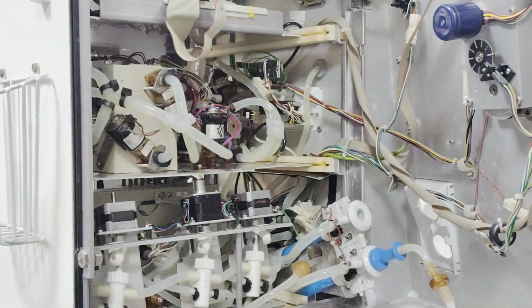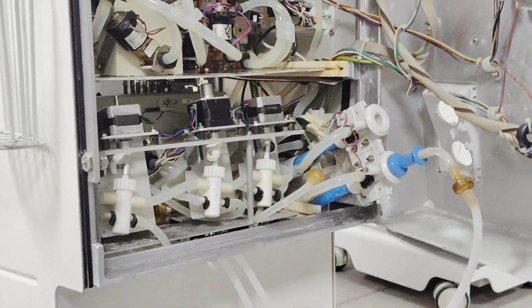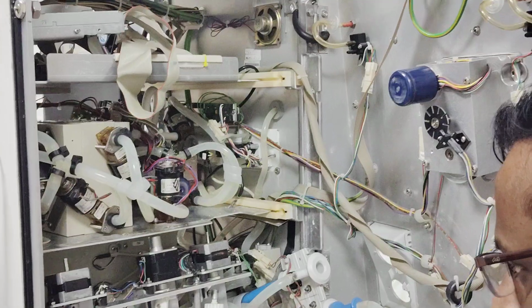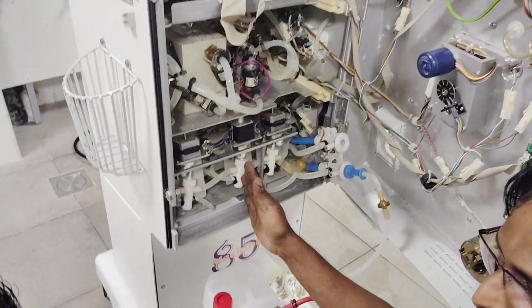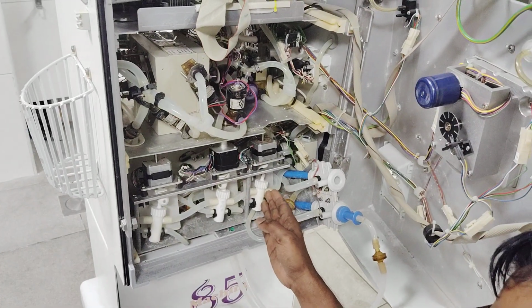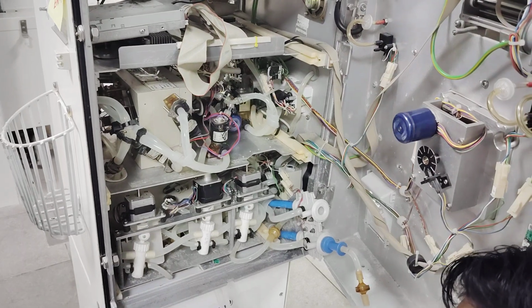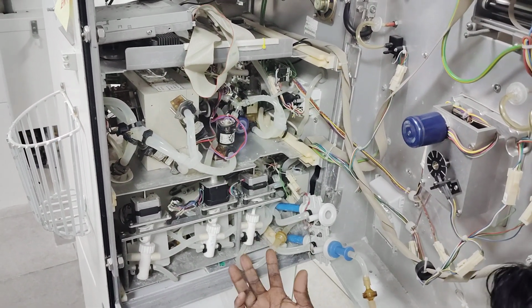This pump has a calibration. If anything goes wrong with this pump, the machine will give some problem during dialysis. If they complain that your temperature is too low or too high, this pump will be responsible for that, and then we have to calibrate this pump. If during dialysis we are getting a bicarb problem, this pump is responsible. Either it's not getting proper concentration and the conductivity test will not pass, or the pump is not working, or the pump rotation is not okay, or the sensor is not okay.